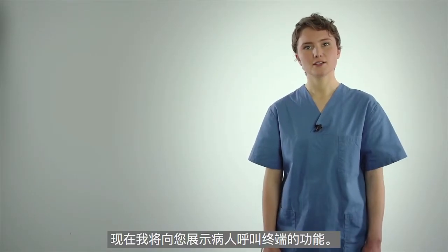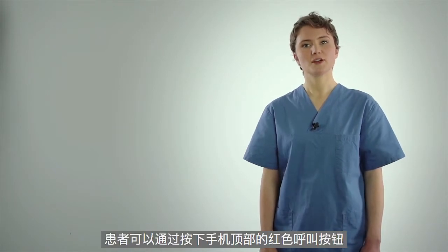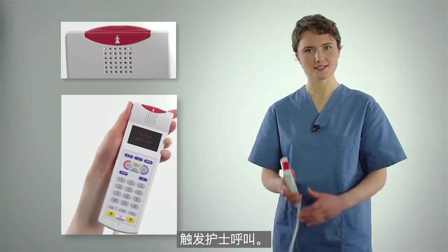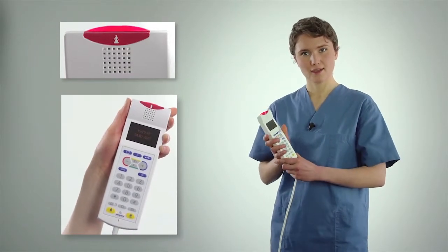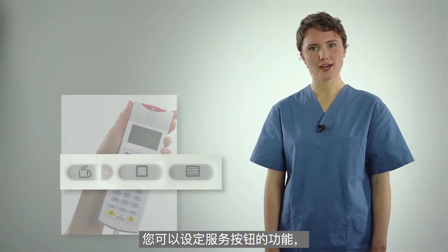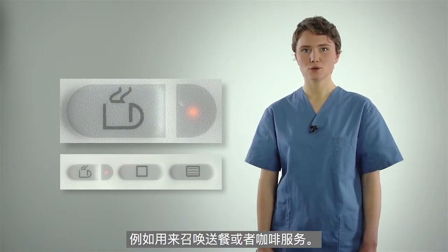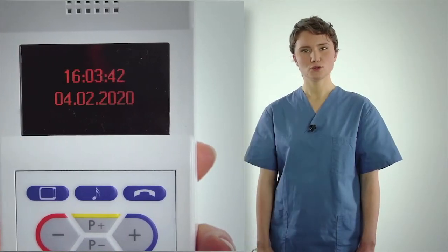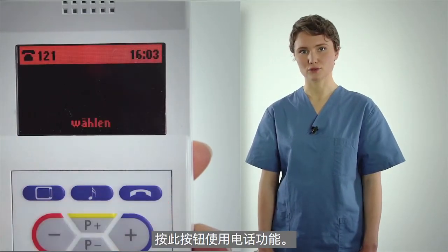Now I'll show you the functions of the patient terminal. Patients can trigger a nurse call by pressing the red call button on top of the handset. As an alternative to the patient call, the service button can be used to order tea or coffee.